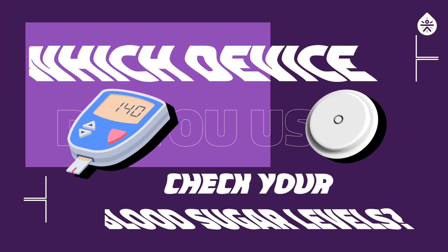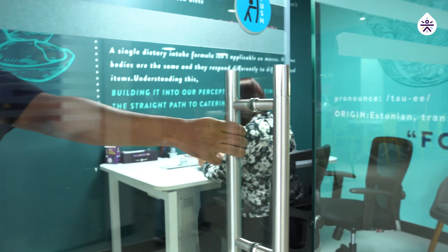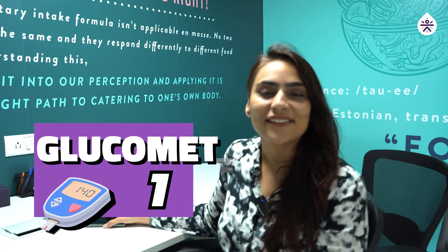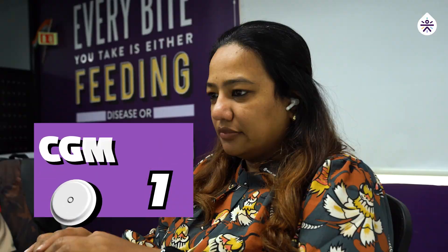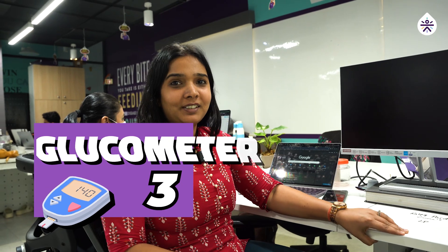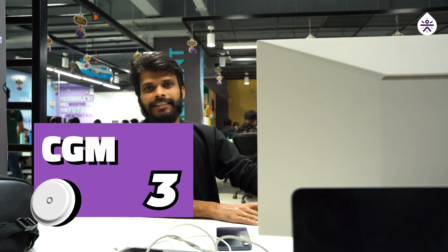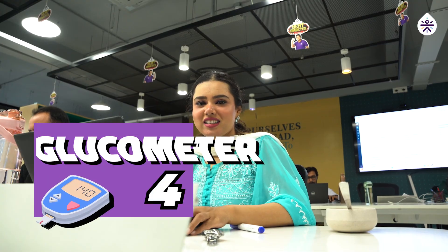Which device do you use to check your blood sugar levels? Glucometer. CGM. Glucometer. Glucometer. CGM. CGM. CGM. Glucometer.